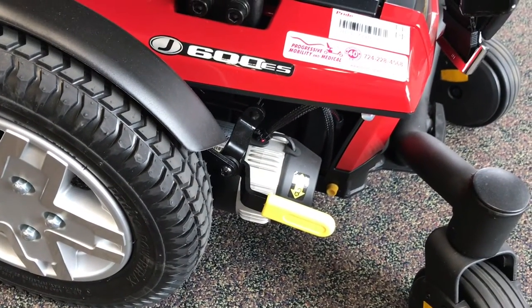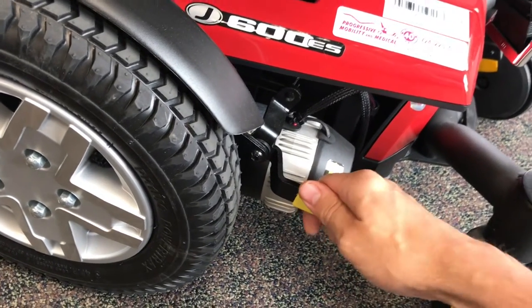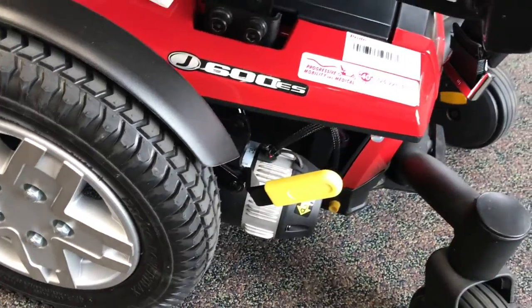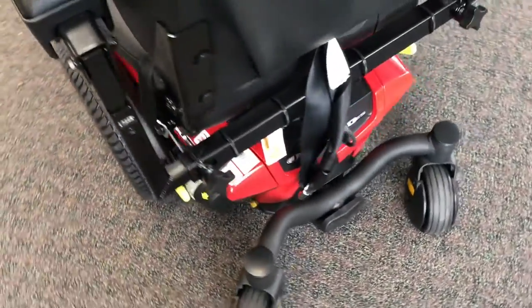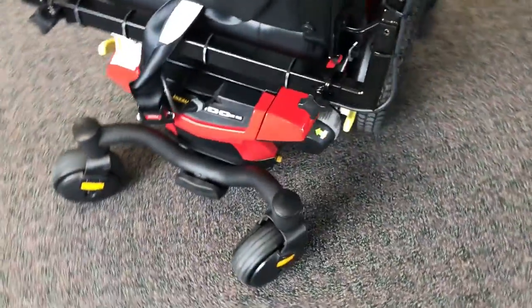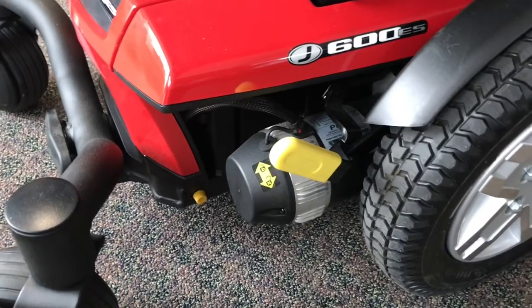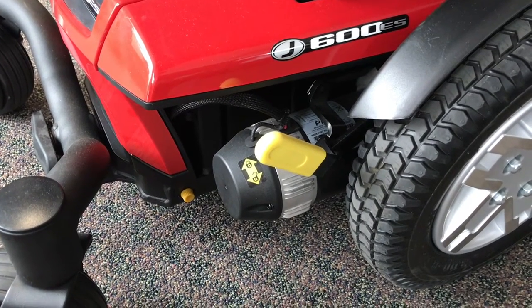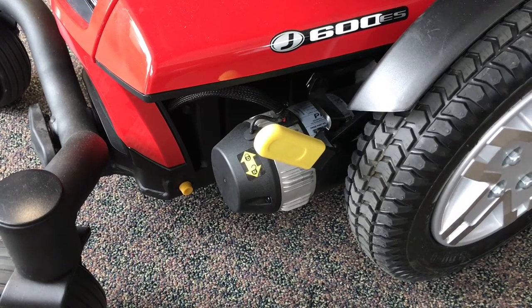There are two yellow levers attached to the motors behind the drive wheels. If you flip those levers down, it disengages the motor from the wheel, effectively putting it into neutral. So if you ever need to push the chair — say your batteries died and you were outside or down the hall — press those yellow levers down and it will put it into neutral.